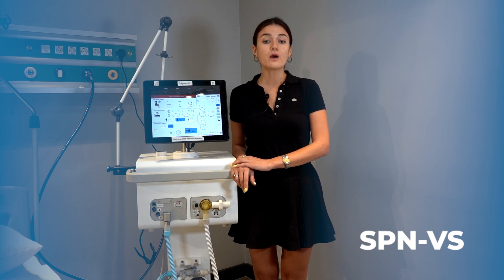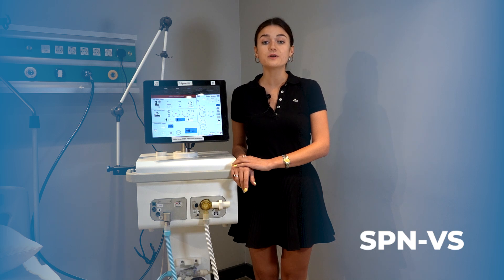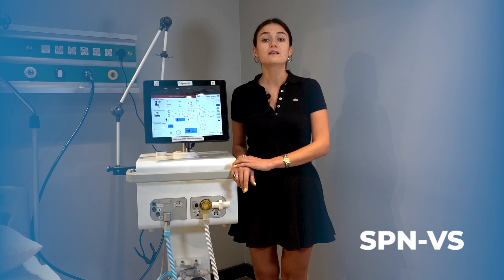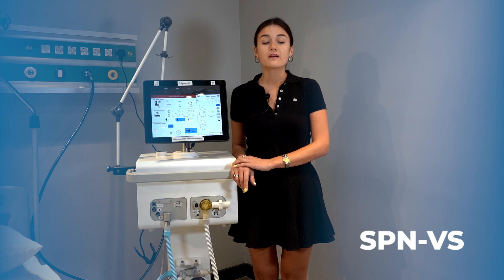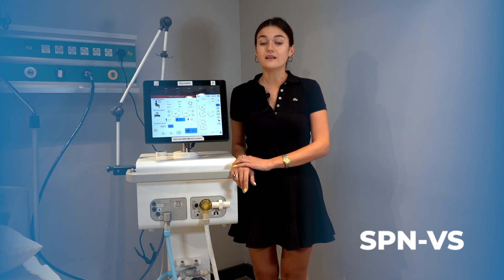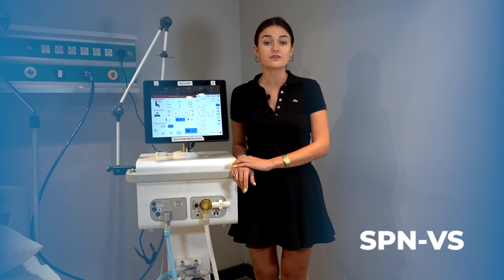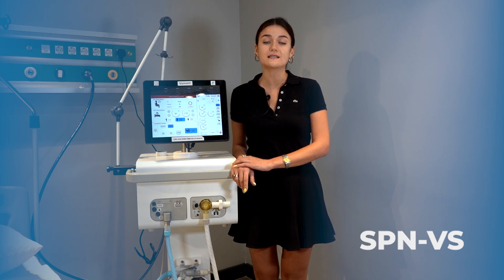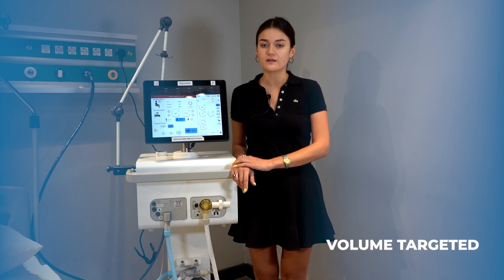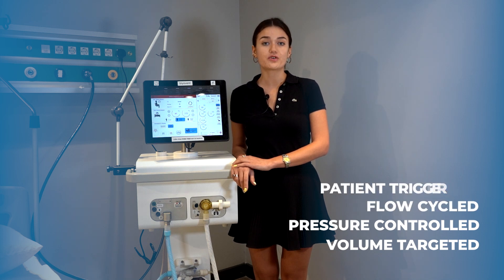Like every BioVent ventilation mode, this is selected and adjusted by respiratory specialists based on factors such as the patient's clinical condition, respiratory support needs, and respiratory ability. The use of this mode aims to optimize and support the patient's respiratory efforts as needed. The mode's key features are being volume targeted, pressure controlled, flow cycled, and patient triggered.